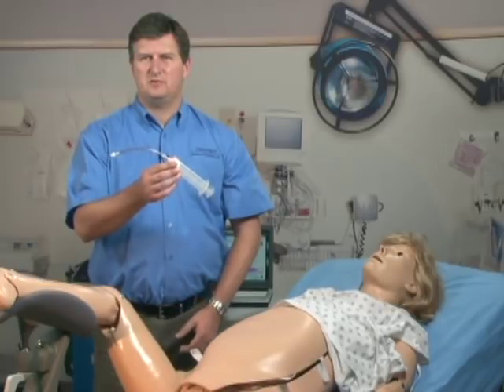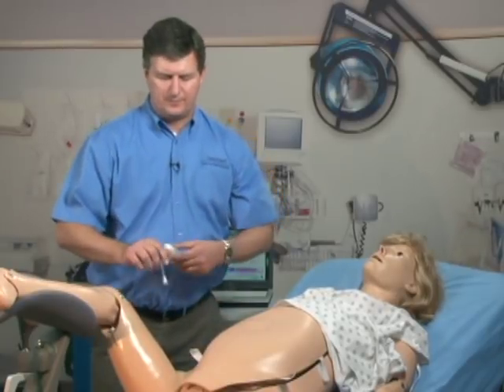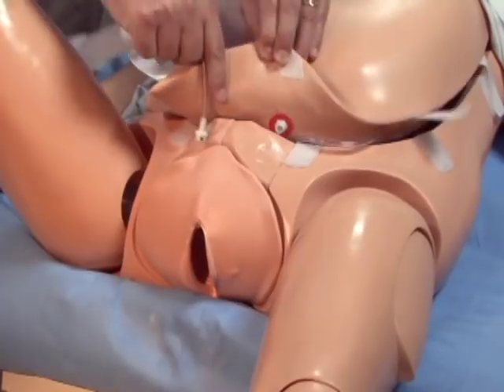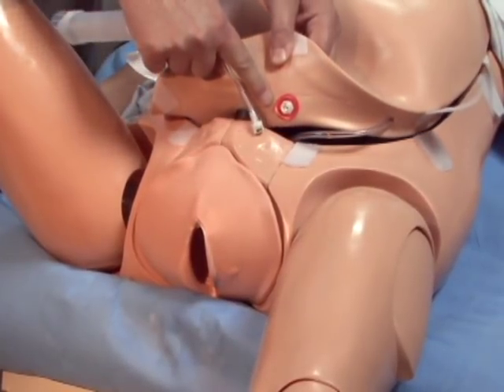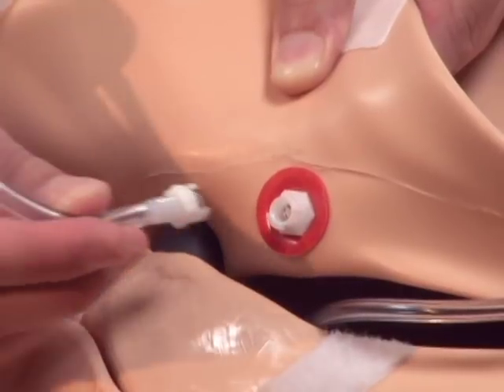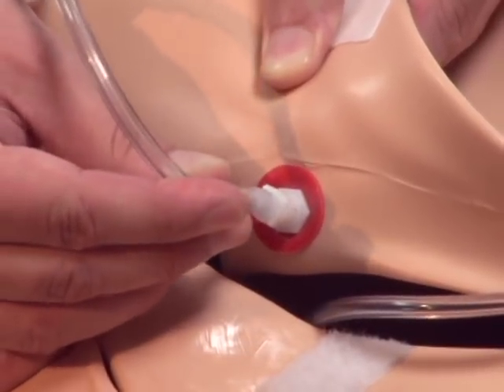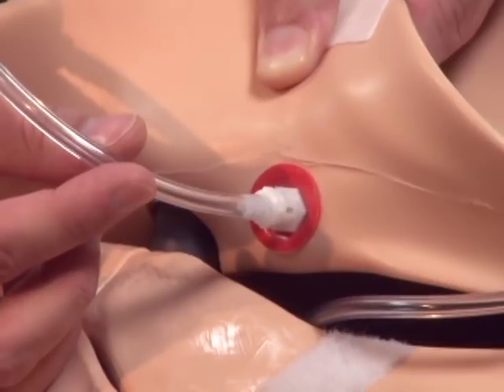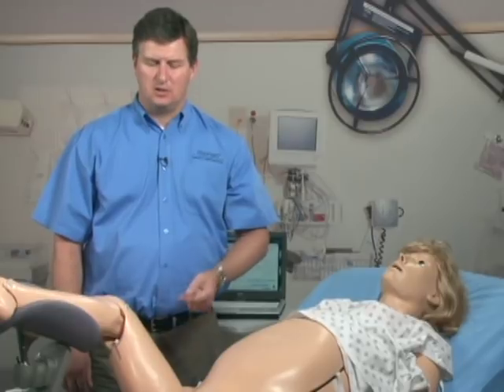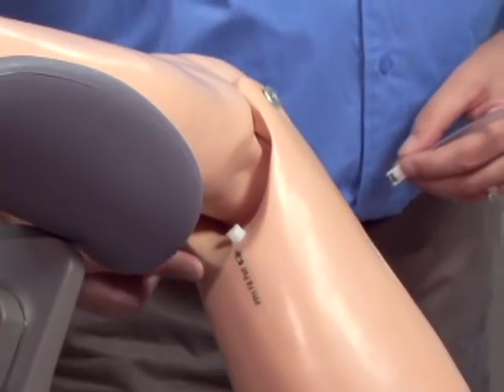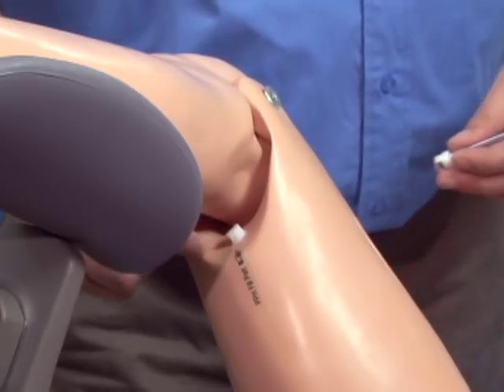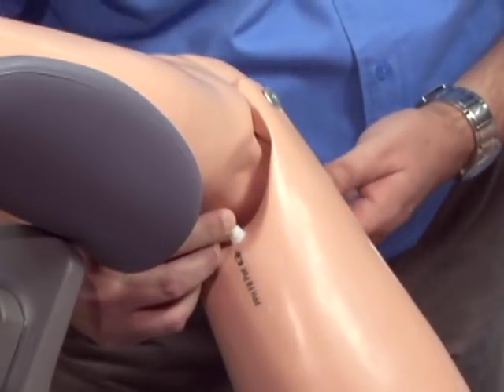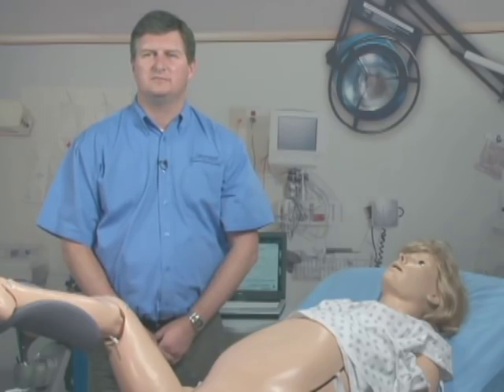To fill the urinary bladder in the abdominal cover, you can use the fill tube and syringe provided. The fill port opening is located on the underside of the cover. The connector pushes on and locks with a quarter turn to the right. Using the same fill tube, you can also fill the postpartum hemorrhage kit located in the right leg. The fill port is underneath the right knee and attaches in the same way as you did with the abdominal cover.